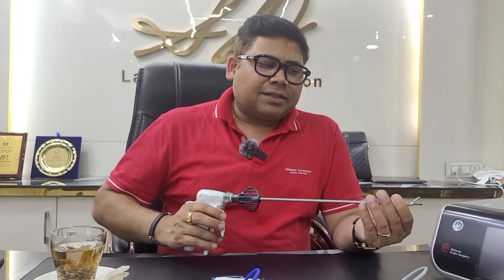If you focus on this jaw, can you see there is a black jaw? This black jaw is the piezoelectric material — it is the active jaw, the lower jaw. And can you focus on this jaw? Can you see the white portion? This is a teflon-coated jaw, which is the inactive jaw. So when we talk about harmonic scalpel, always understand there are two jaws: one inactive, which is the upper jaw, and one active, which is the lower jaw.